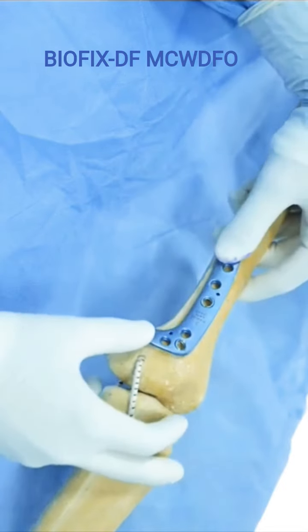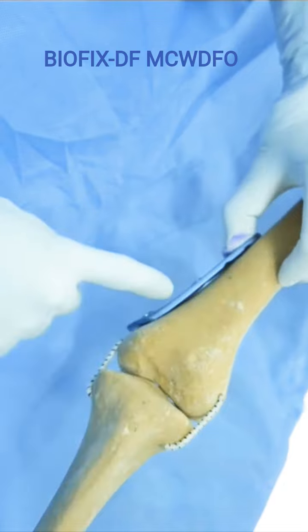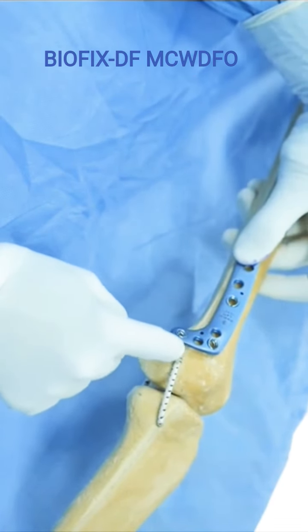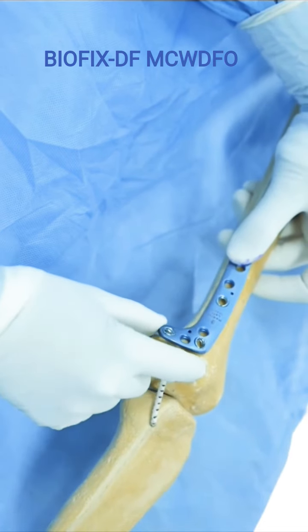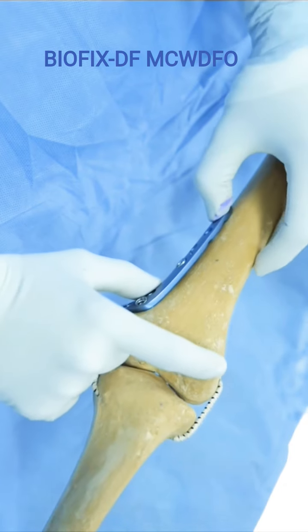Sawbone, and this is how the plate basically sits. Now if you look at it, this plate is meant to be sitting on the femur quite high. This is far away from the condylar area here again. This would be rather where the patient's medial epicondyle would be. So the plate sits flush like this, okay, and this is quite high.